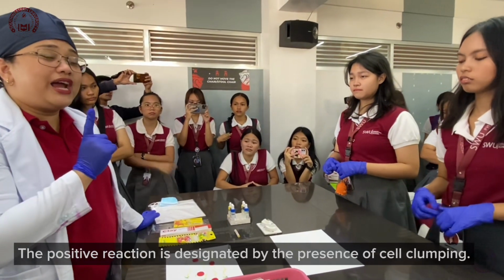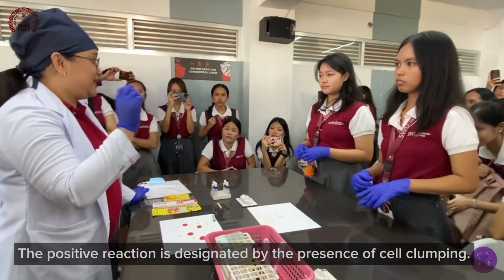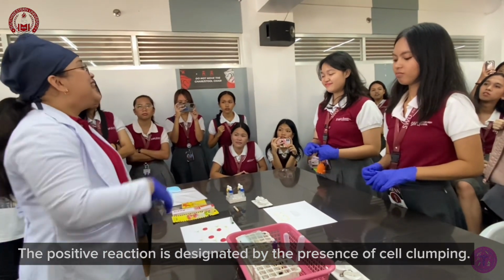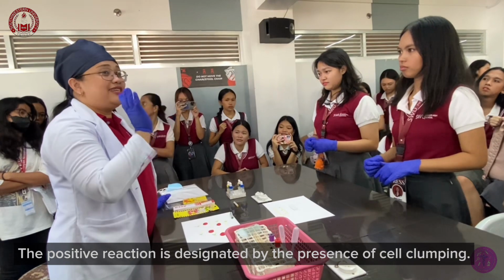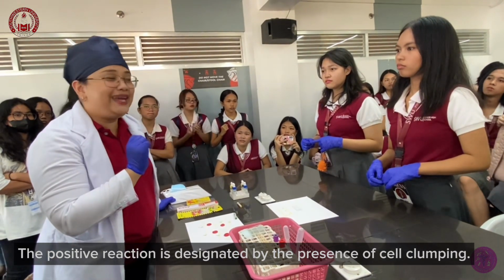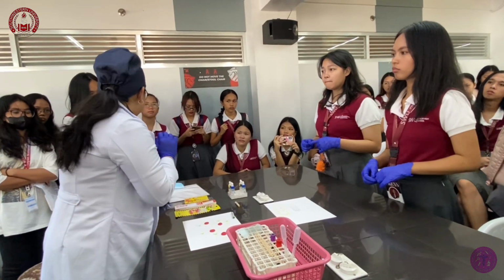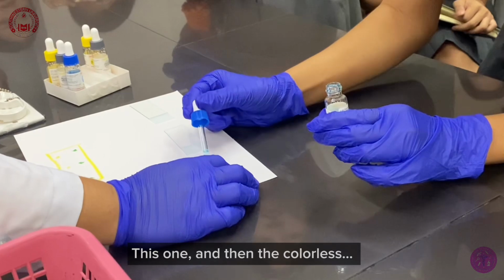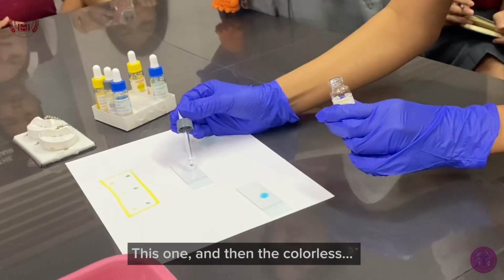The positive reaction is designated by the presence of cell clumping or agglutination. We will see that later on. One, and then the colorless.